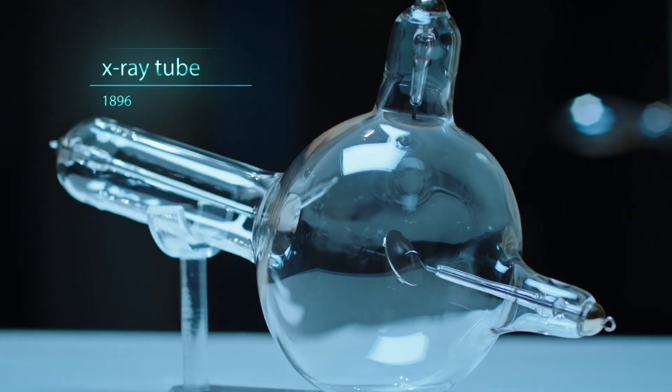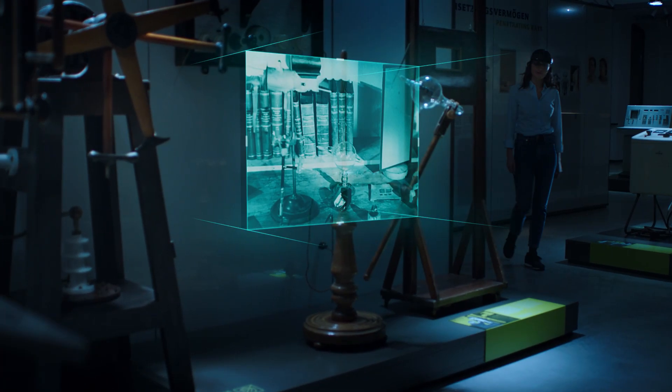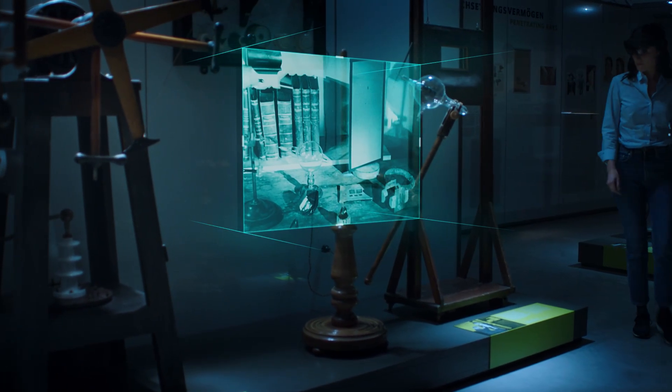Just a short time later, our engineers developed the first X-ray tubes specifically designed for medical use.